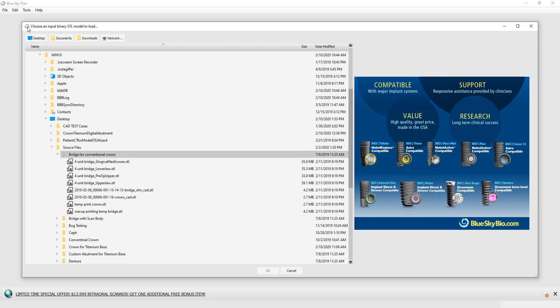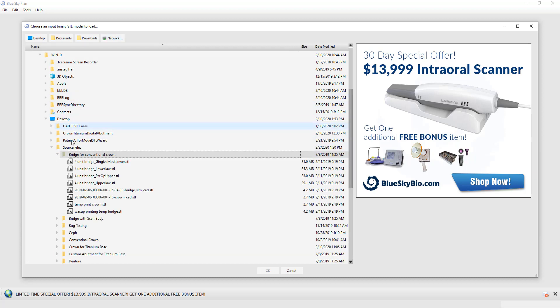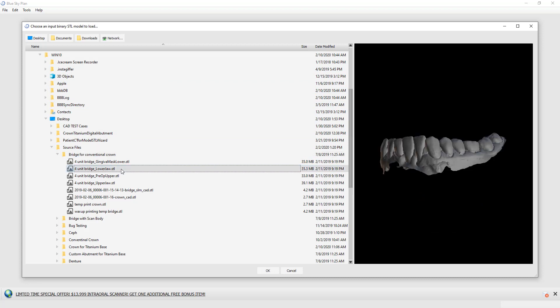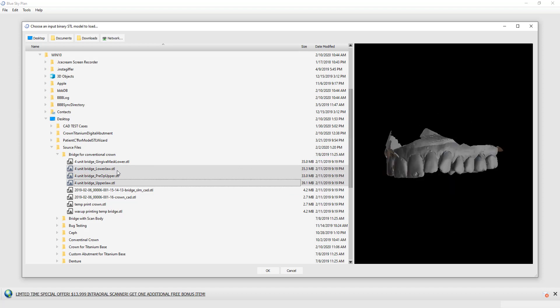The directory of our computer opens up on screen. We have the shortcut buttons in the top left: Desktop, Documents, Downloads, Network. We can navigate to the location of the relevant files and we can multi-select by left-clicking the first one, holding down the shift key, clicking the last relevant file, and the software will select all the files in between. We then click the OK button.